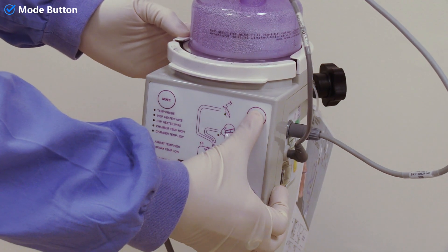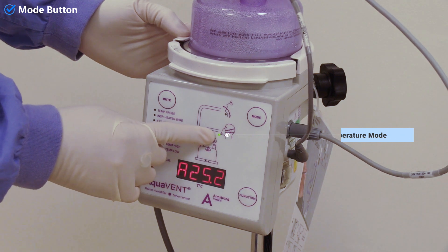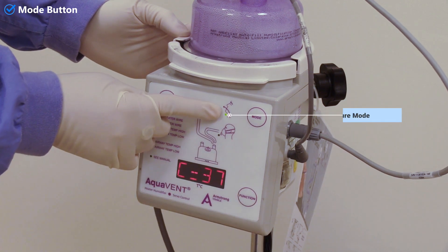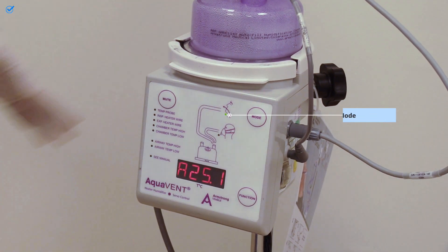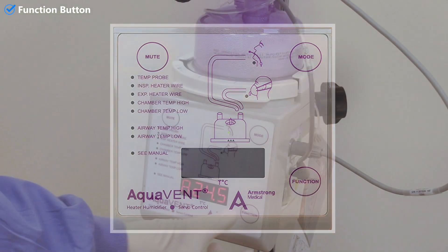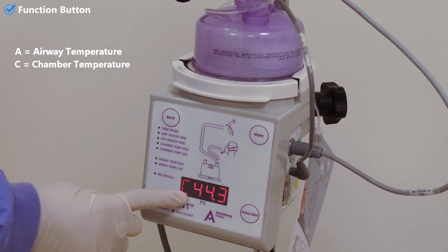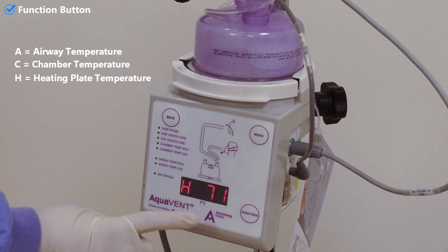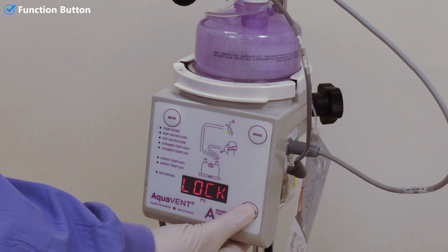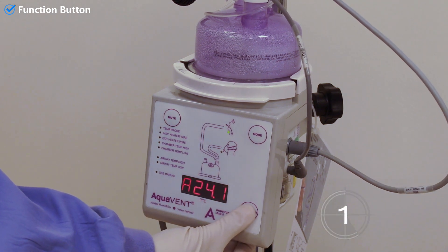The heater humidifier device has three buttons. The mode button allows you to choose between high and low modes of circuit heating. Currently it is in the low temperature mode, delivering 34 to 35 degrees Celsius. In the high temperature mode it can deliver up to 40 to 41 degrees Celsius. The function button allows you to choose between three temperature readings displayed on the screen: A stands for airway temperature, C shows chamber temperature, and H displays heating plate temperature. You can lock the screen by pressing the function button for three seconds; to unlock, do the same.